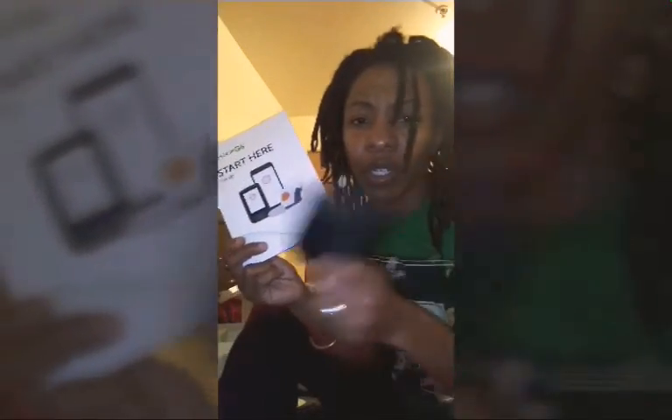What's the sensor? Let's check the box. This is the sensor — attach transmitter. I don't think it came with a charger. Wait, pause — pause the video. We're going to come back because we're actually not prepared to insert the sensor on him right now. We'll be back; I need to read more of the instructions.